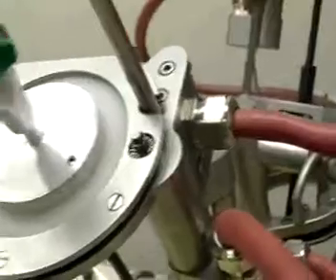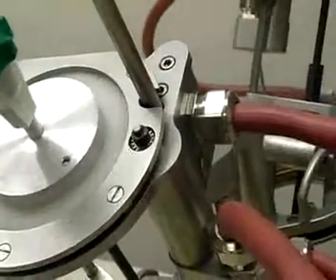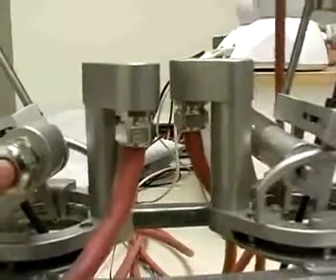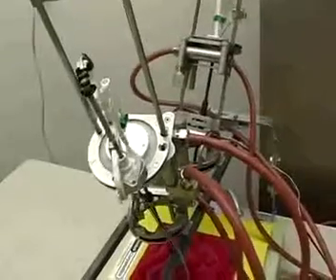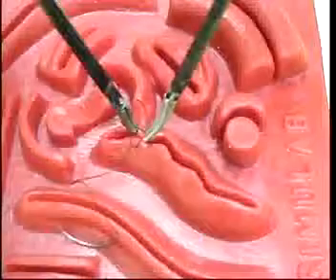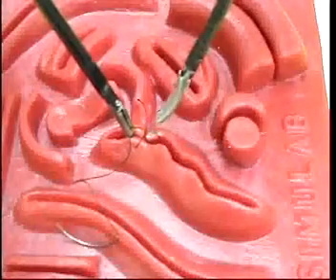Also due to the small size and weight of the manipulators, large actuation torques are not required for manipulation of the surgical instruments. Sixteen and twenty millimeter diameter miniature motors are used whose maximum actuation forces are much less likely to cause trauma to bodily tissues than typical manipulator arms in case of operator error or equipment malfunction.